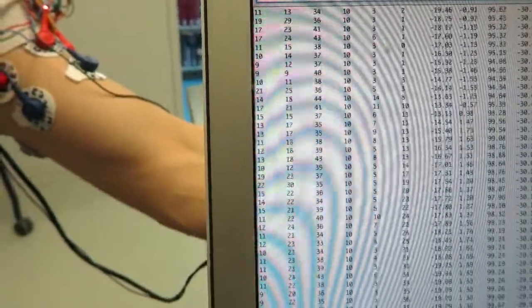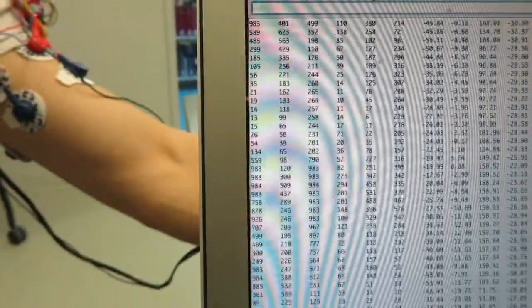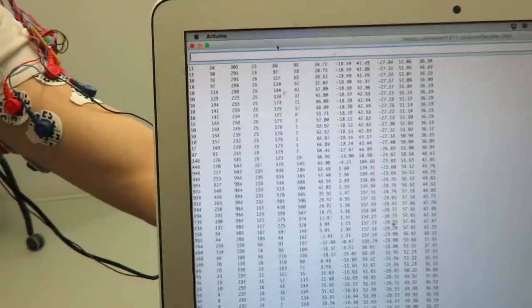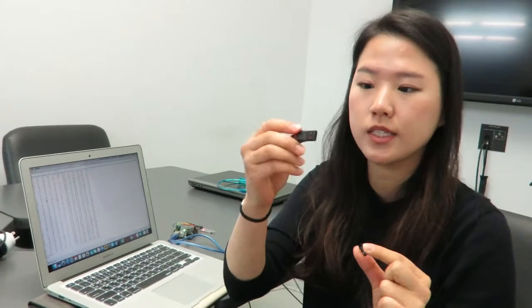If Aaron flexes, you can see the value increasing like this. Also, the IMU value changes as Aaron moves around. Now the data acquisition is finished, so we can read the file from the SD card to the PC through the SD card reader.